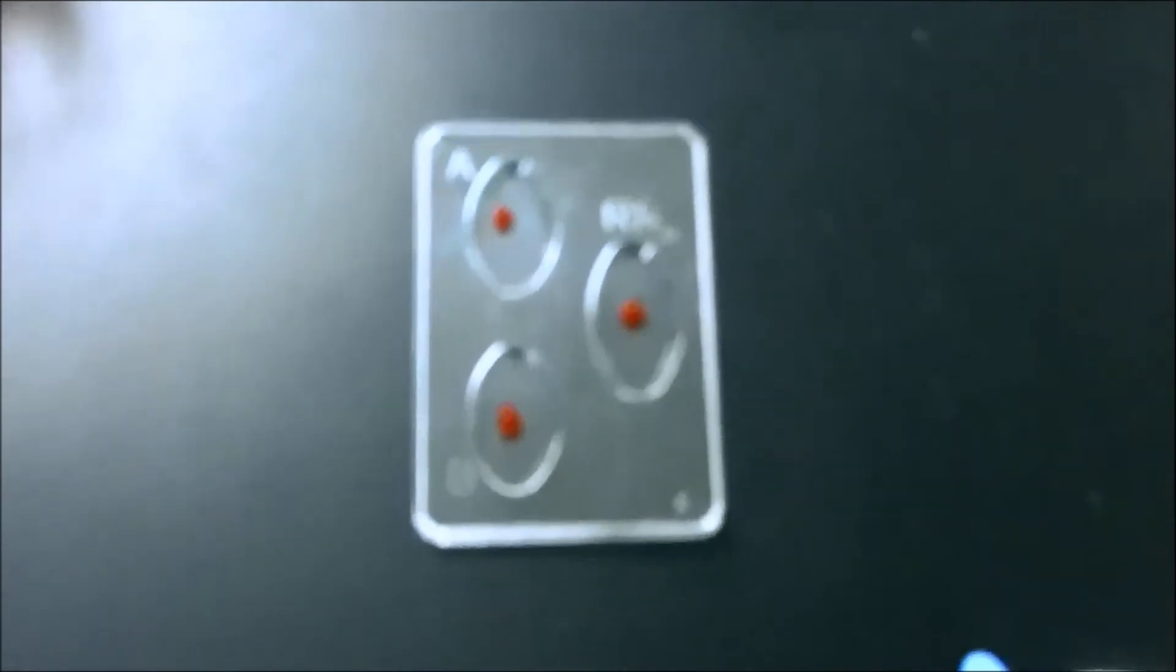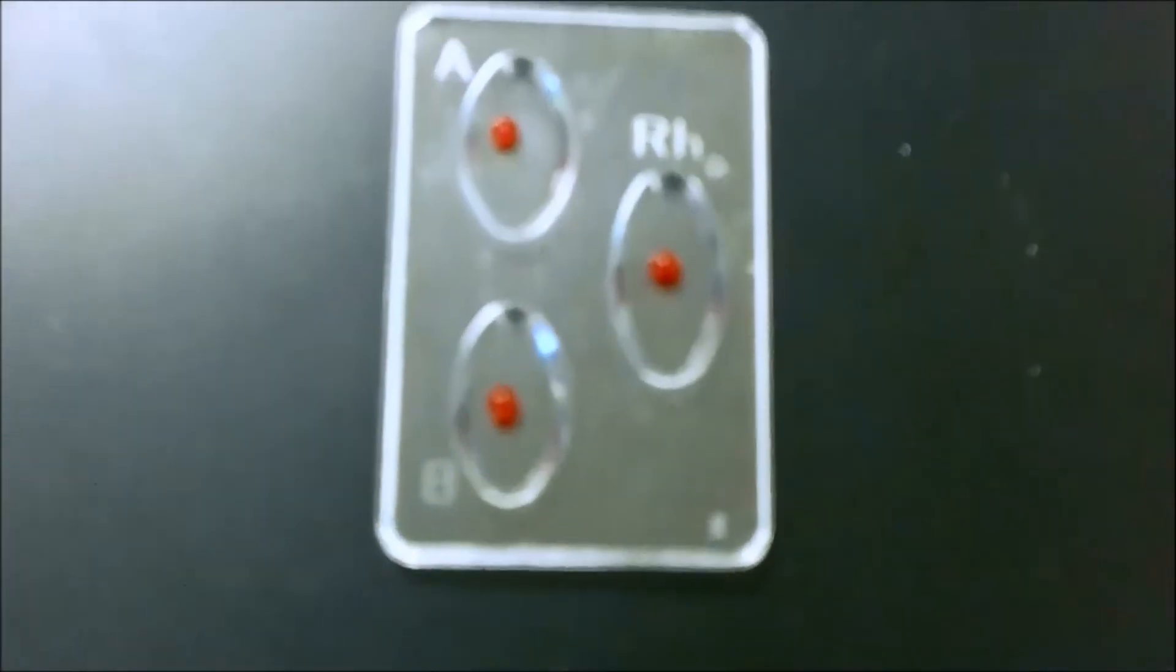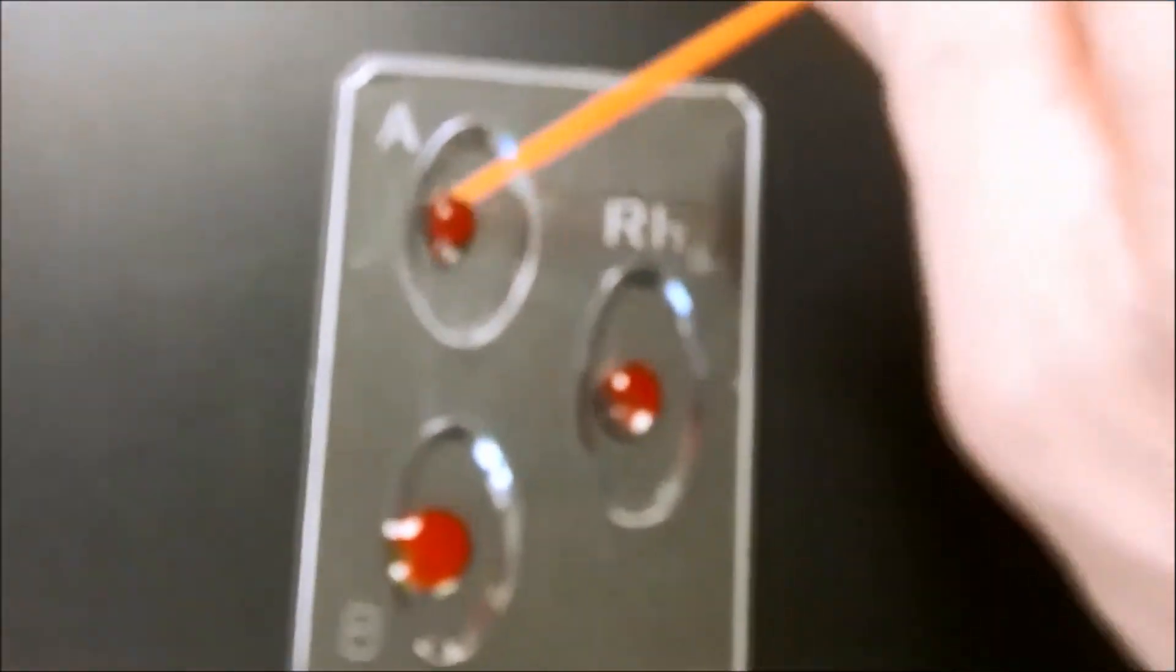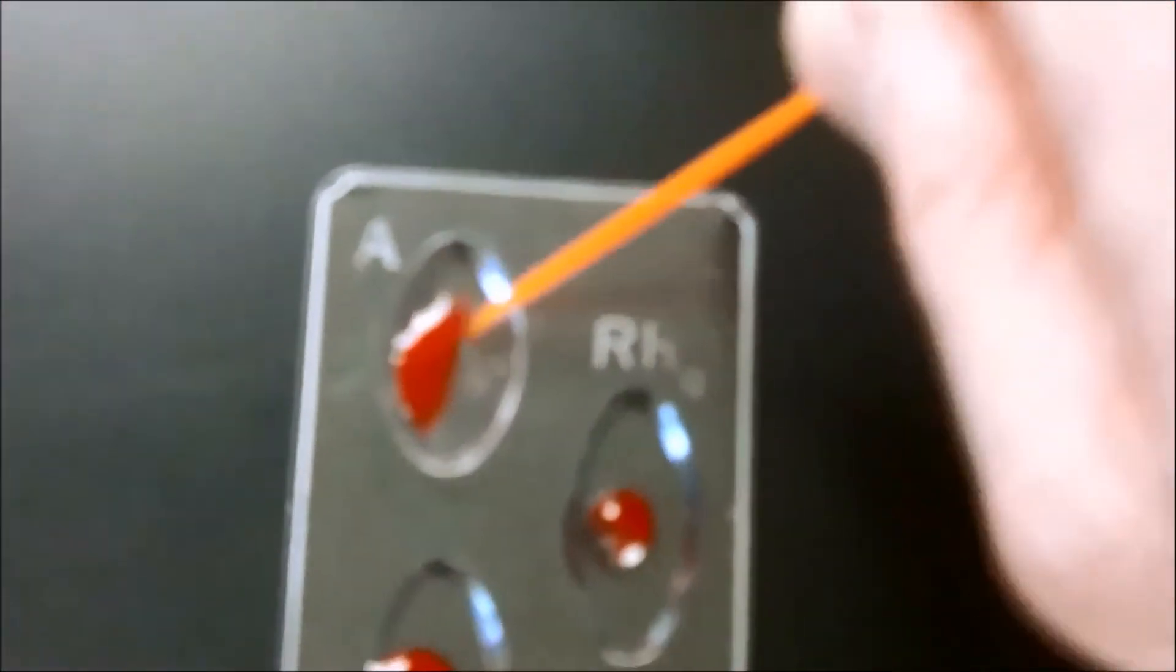Okay, you can see I have the blood now. Let me change the focus on this. You can see I have the blood. Now, the yellow is B, so a drop of yellow. The blue is A, so a drop of A. The RH is clear, a drop of RH. Now, I'm going to stir. And then I'm going to throw this away. Discard. Then I'm going to stir the B. Throw this away. Discard. And I'm going to stir the RH. And discard.